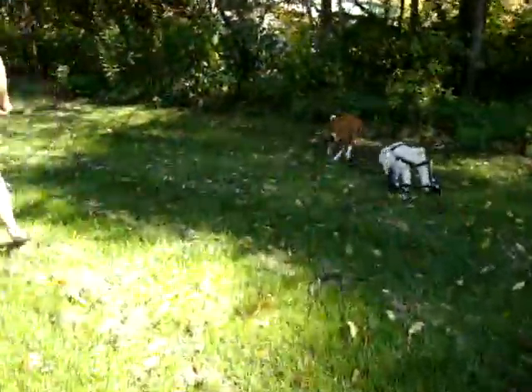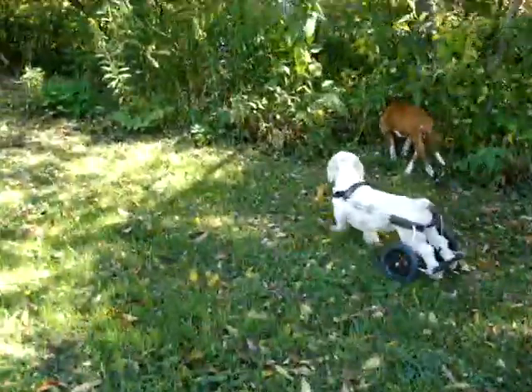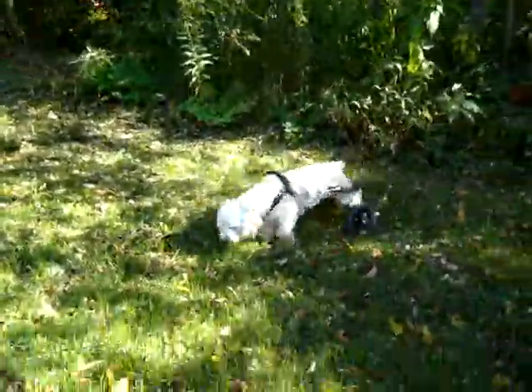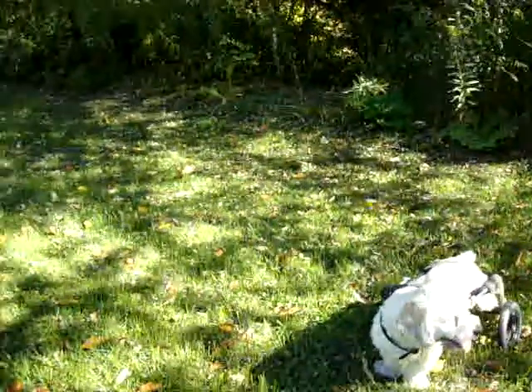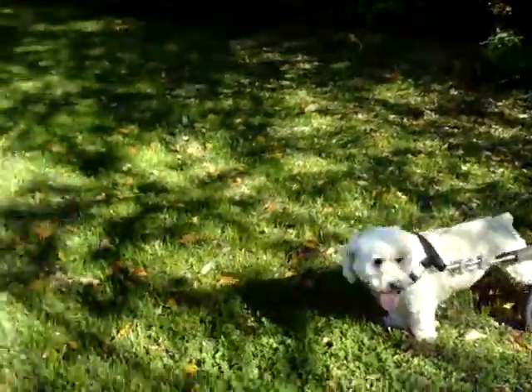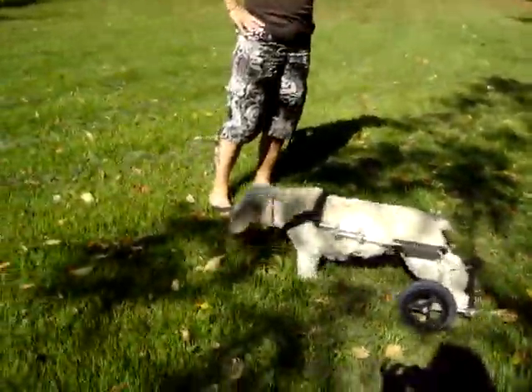It's okay. There you go. Look at her moving those legs. Isn't that great? Look at her moving those legs — it's a little miracle. We see it very often. As soon as you bend their legs, it sets up a different set of reflexes. So they stop dragging and they start flexing, and they're going to start building muscle mass.